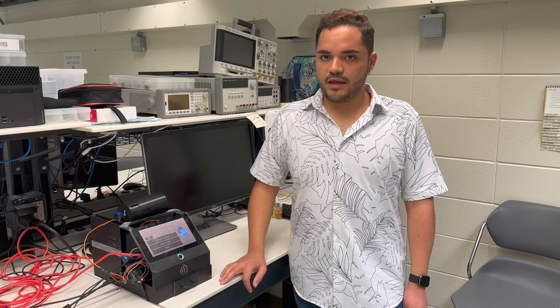Everyone, welcome to our senior design presentation. We are team 13 and our project name is Carrie, short for apothecary. It is a personal medical device that can keep track of your medications, vitamins, etc., and dispense them to you in a safe and streamlined fashion. Let's take a look.